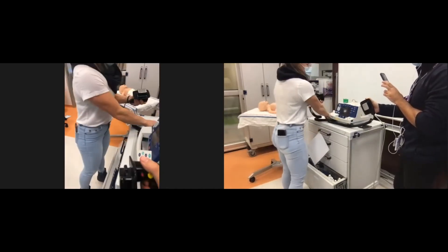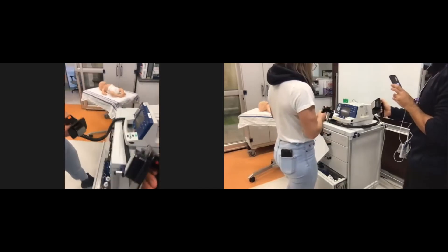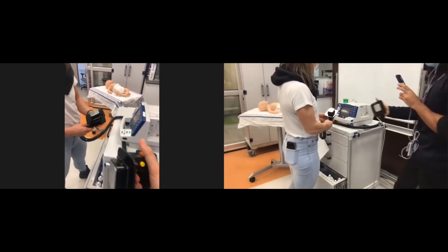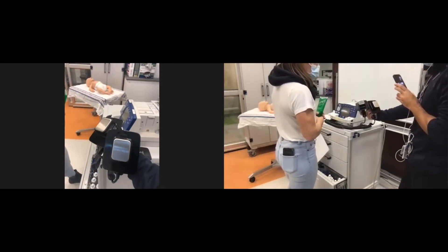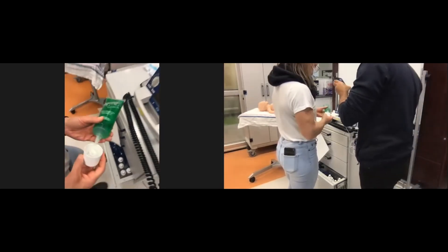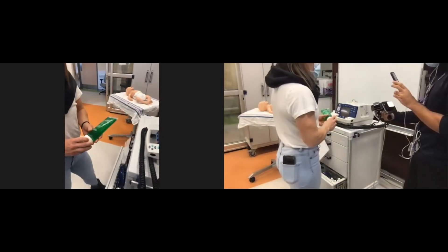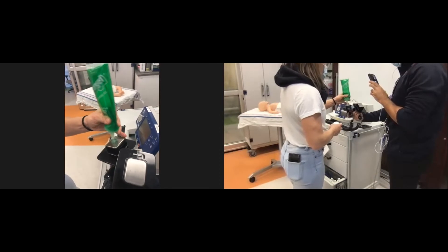Different practitioners have different practices. Some cardiologist colleagues prefer the paddles and the sandwich technique, but there's no data showing that the sandwich technique versus the conventional technique adds any advantage. In an emergency, use the technique that is easiest for you. You typically need to add electrode conductive gel — it has to be specifically electrode conductive gel. You cannot use any other gel, saline, or ultrasound gel.